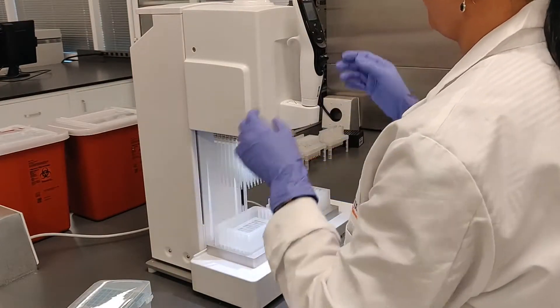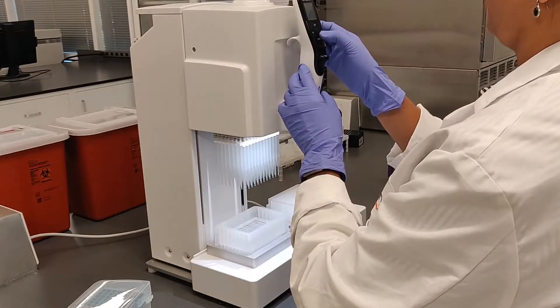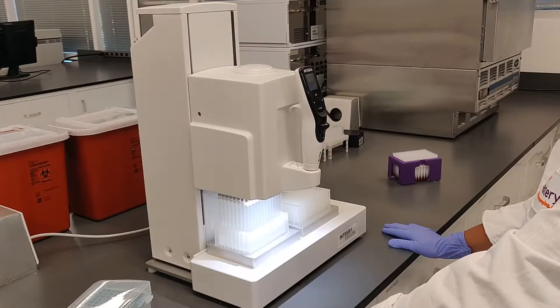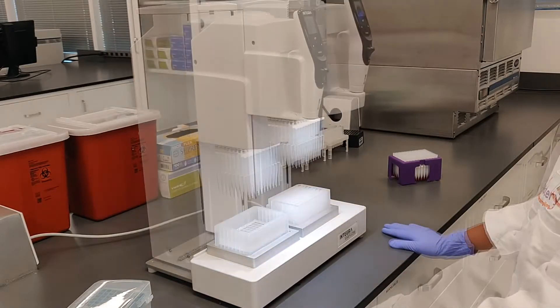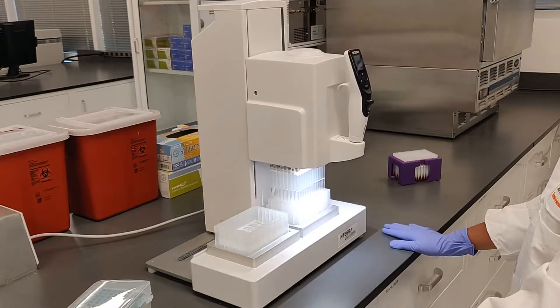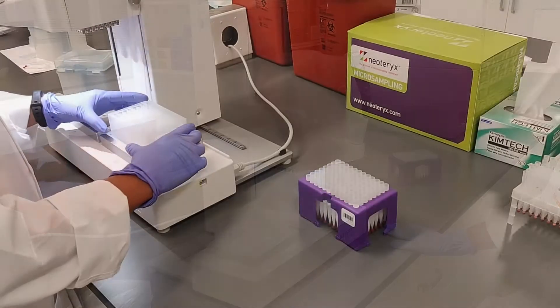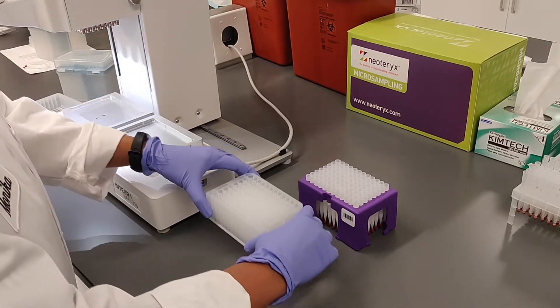With our lab-facing Mitra automation products, you can move up to 96 samplers at a time and extract all samples together for optimum assay precision. Process samples offline ad hoc without disrupting established workflows. Achieve quicker turnarounds at a fraction of the labor cost.